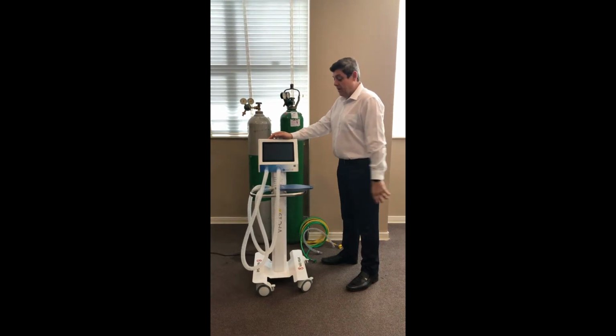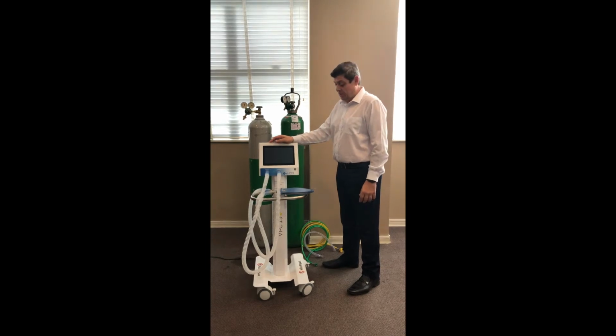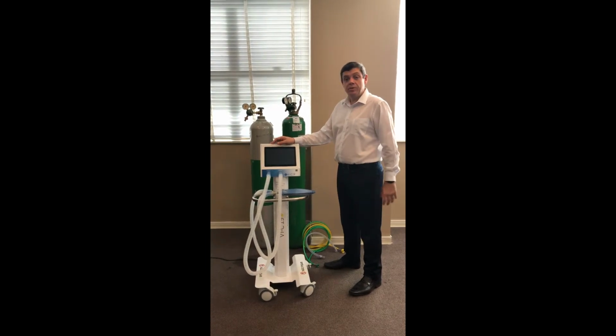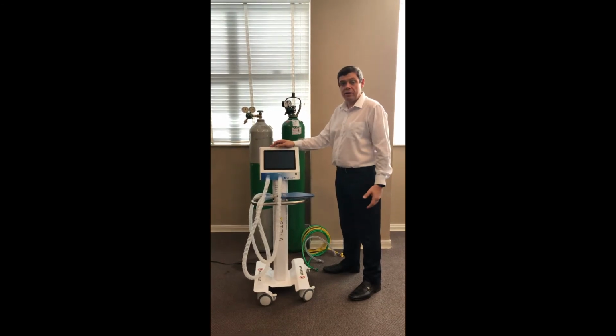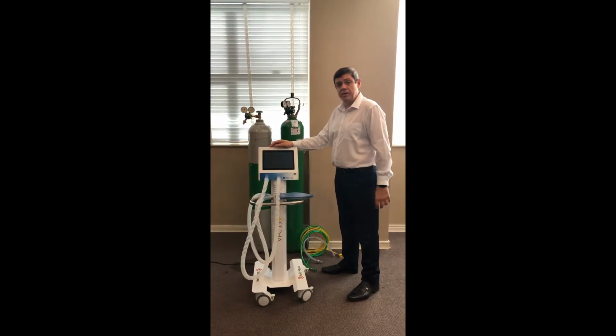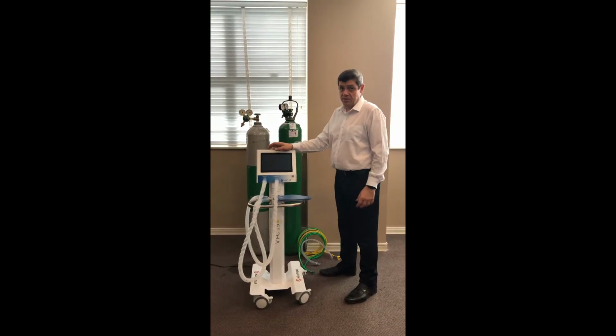Hi, this is VI-C19, the 100% digital lung ventilator. In this video, we will show how to connect the ventilator and the supply of air and oxygen, how to start calibration, and how to initiate a ventilation on the patients.